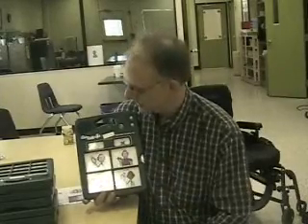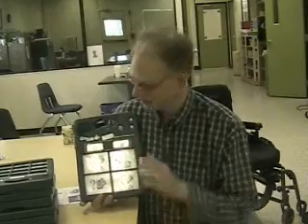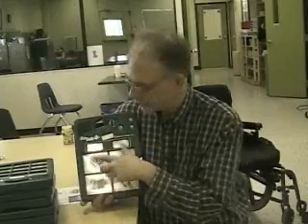Okay, and this overlay doesn't go with this machine, but I'm putting it in here just to show you how I use this. This is called the GoTalk 4 Plus. The plus stands for these more static expressions up here that are the same over all levels. The GoTalk 4 Plus has 5 levels. That means I can have 5 different overlays with 4 different expressions on each one for a total of 20 expressions for this one machine.